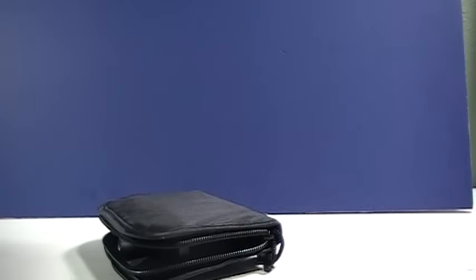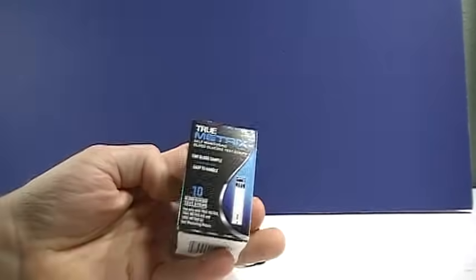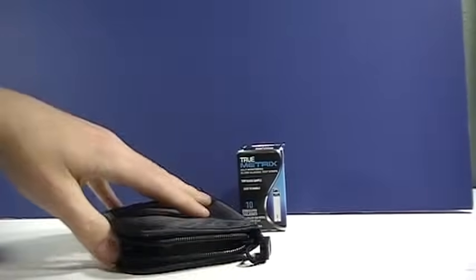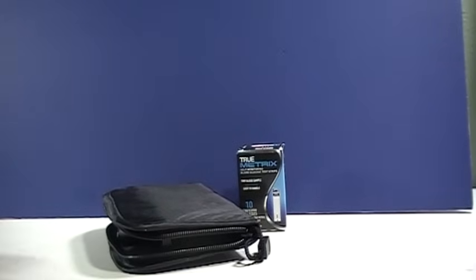Here's the test strips that comes with ten of them. They're really affordable with the True Metrics meter and many insurances will cover them including commercial plans as well as Medicare plans.